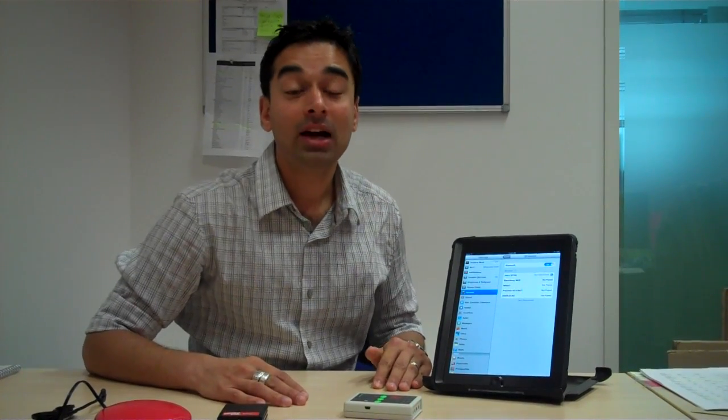Hi, my name is Swapnil. I'm from TherapyBox. Today I'm going to talk to you a little bit about the Pretorians Applicator.